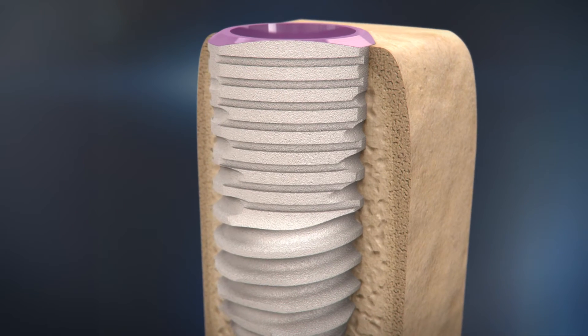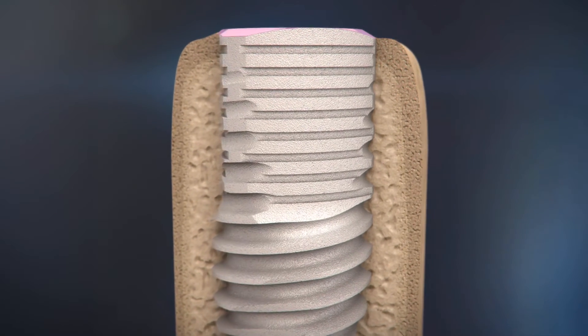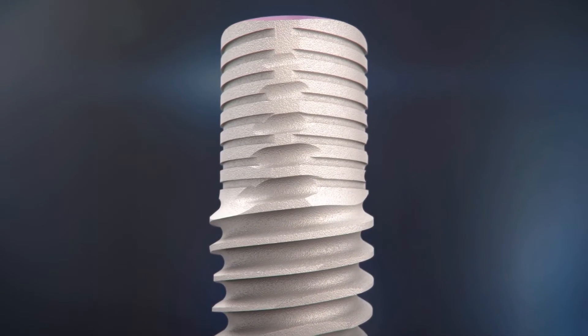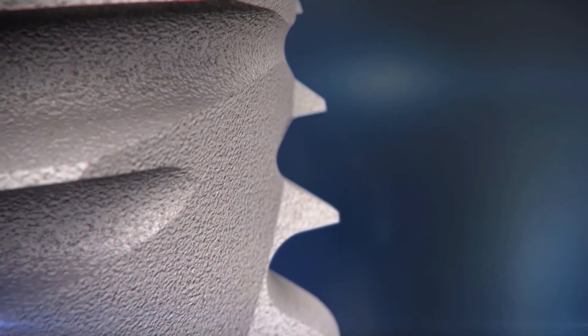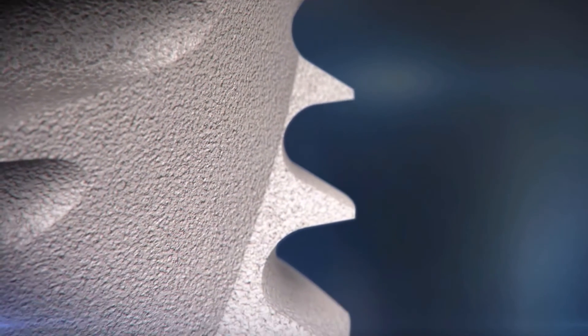The reduced contours ensure maximum bone preservation. The rounded inter-thread design allows for optimal adherence of bone to the implant surface.